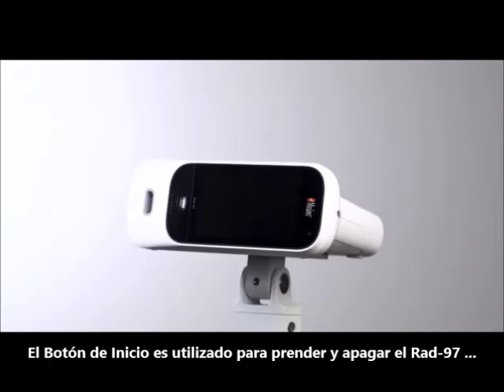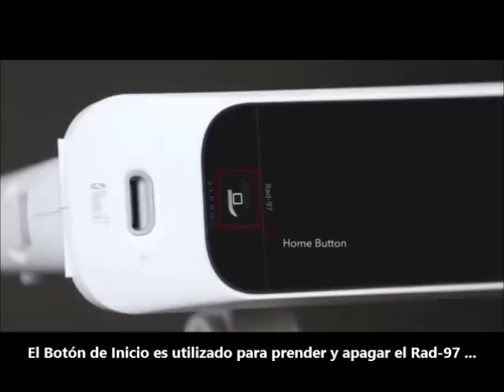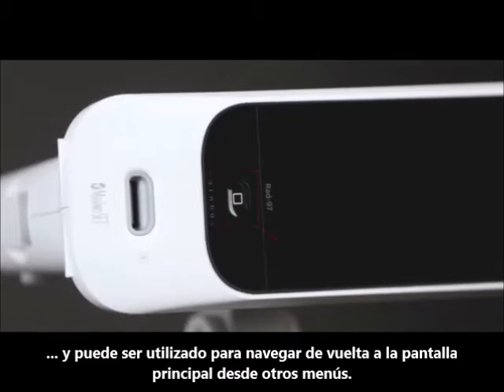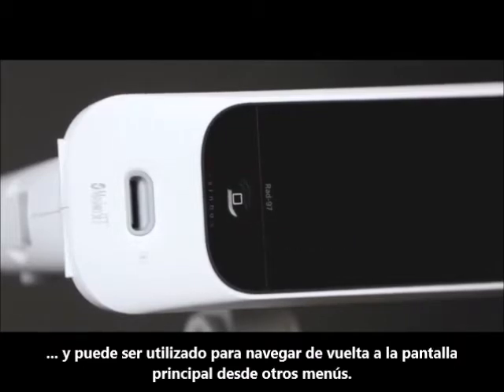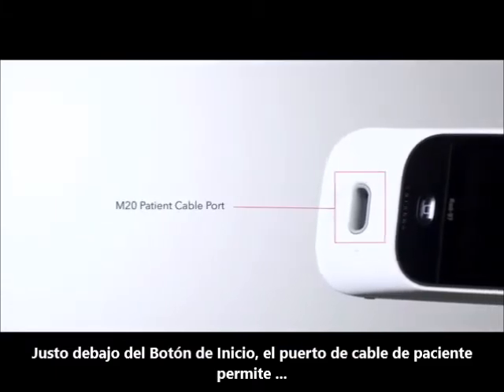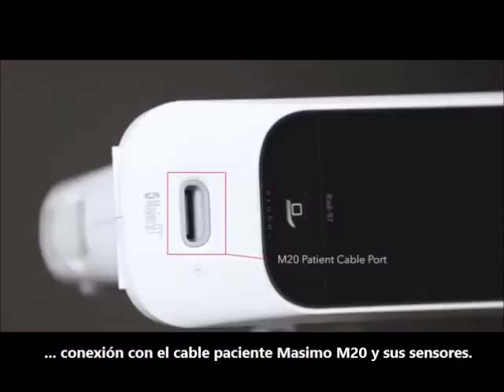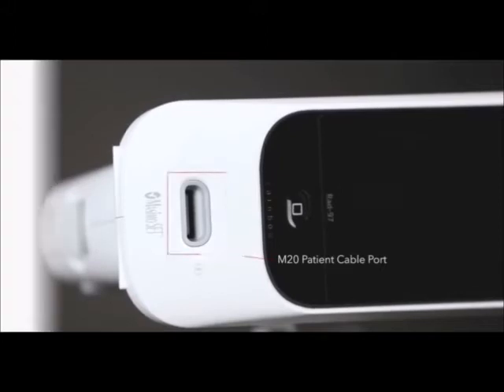The home button is used to power RAD97 on and off and can be used to navigate back to the main screen from other menus. Right below the home button, the patient cable port allows for connection of a Masimo M20 patient cable and sensor.